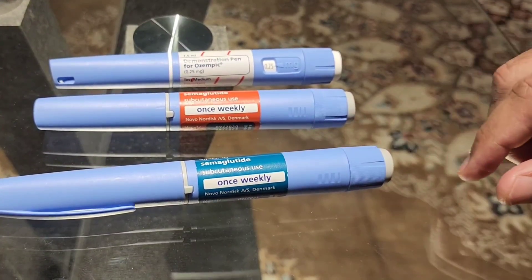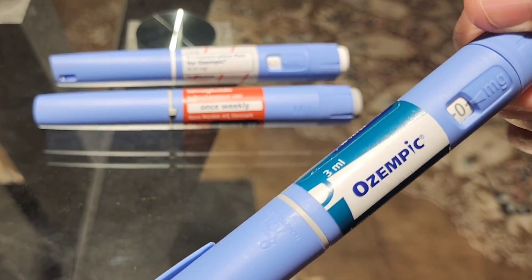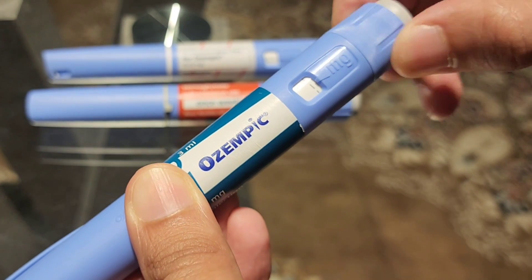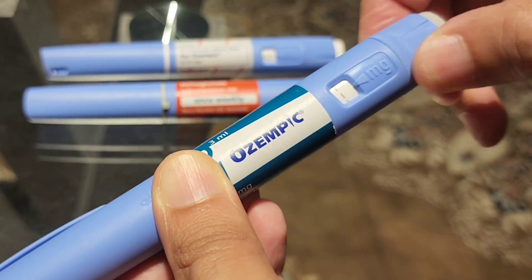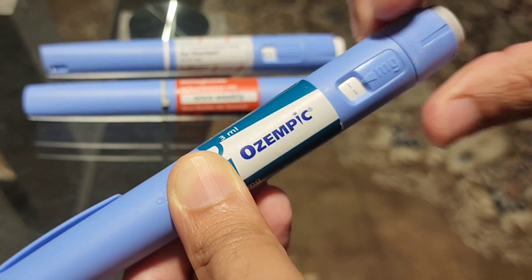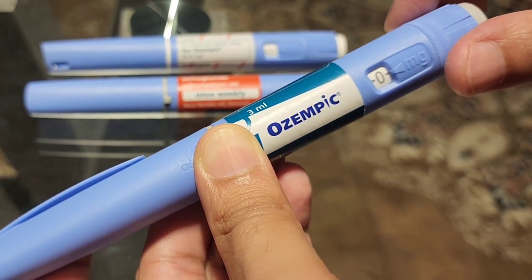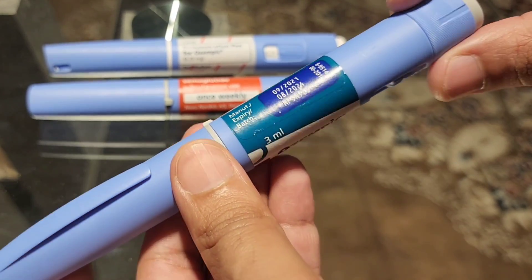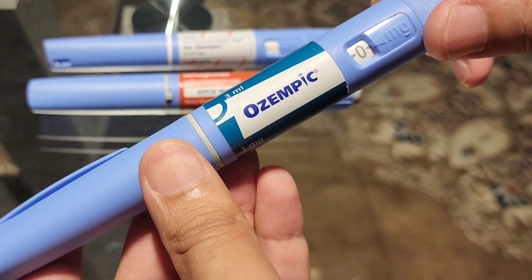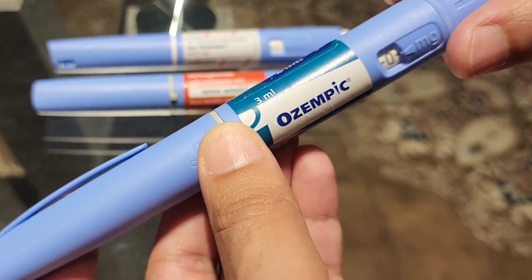Each pen device is supposed to administer the same single dose. For example, if you look at the 1 milligram pen device, it is supposed to administer only the 1 milligram if you dial all the way to the end. However, due to supply constraints, sometimes it is difficult to source the different strengths of pen devices. So I'm going to teach you how to take different dosages from a single pen device. This is possible — to take a lower dose from a higher strength device.